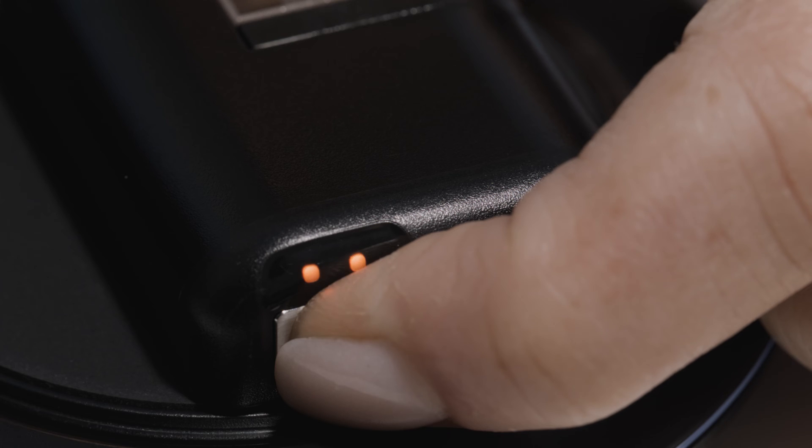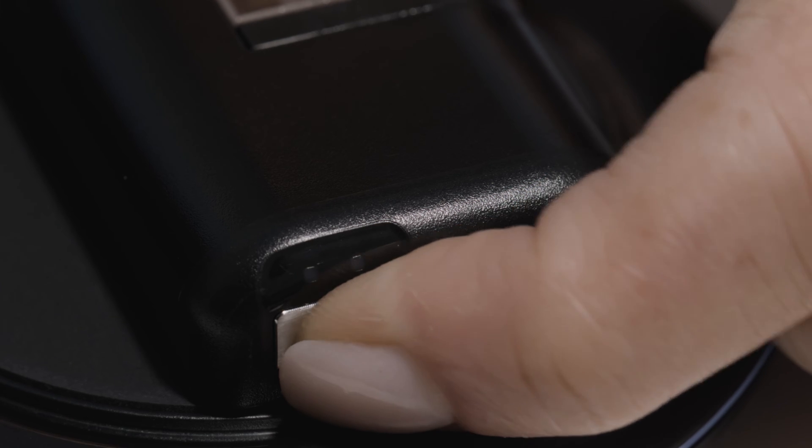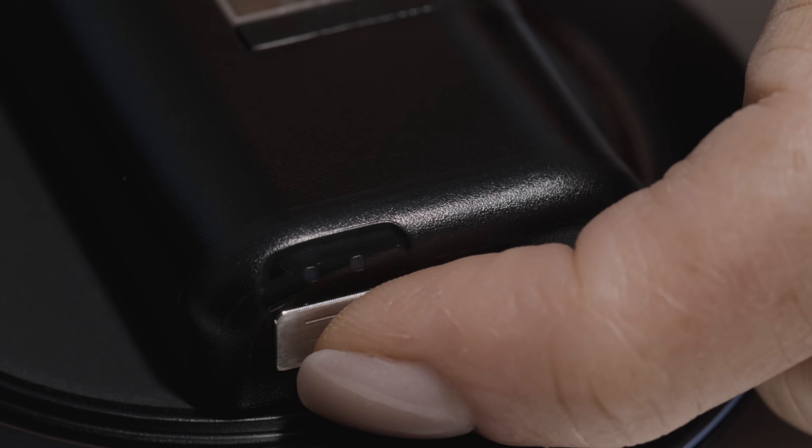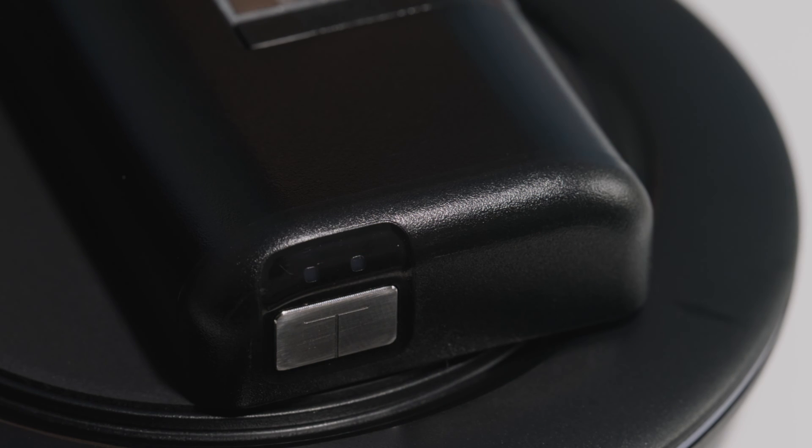To view the lights, you need to press and release the pump button. After a few seconds, the pump status lights will light up and the pattern will display for 10 seconds.